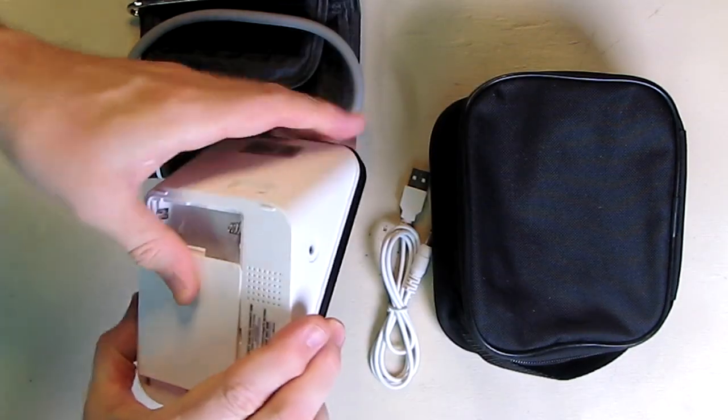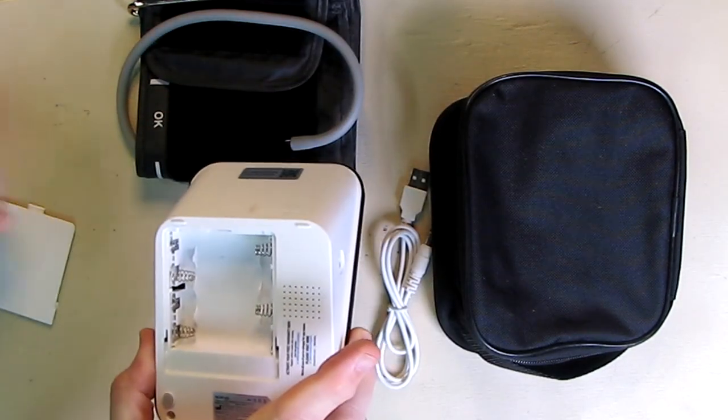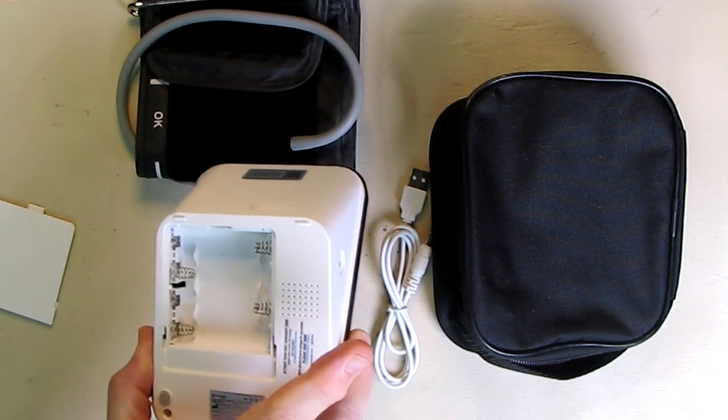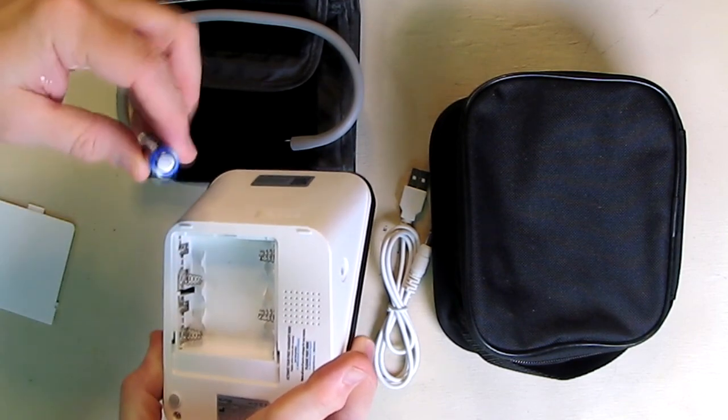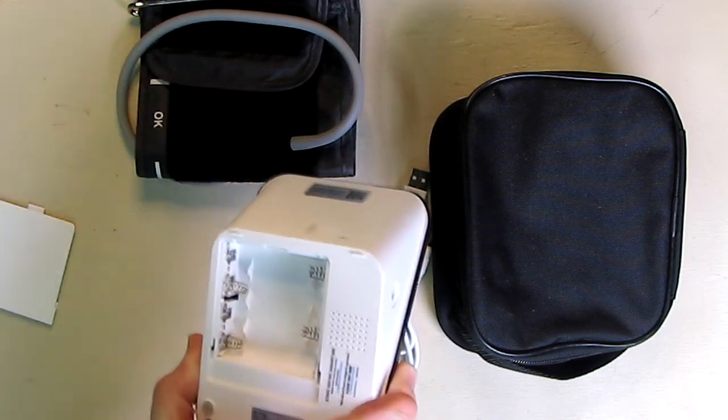You just open this compartment up, and you can see you've got four AA battery slots right there. Just load them up, and you'll be set.